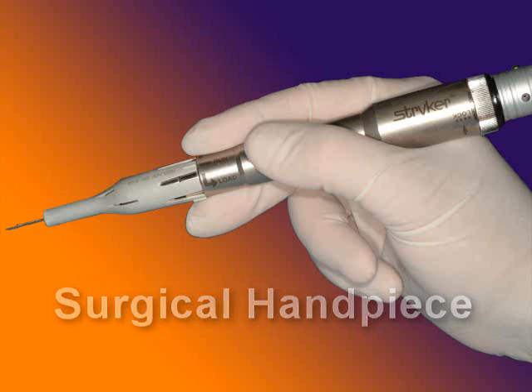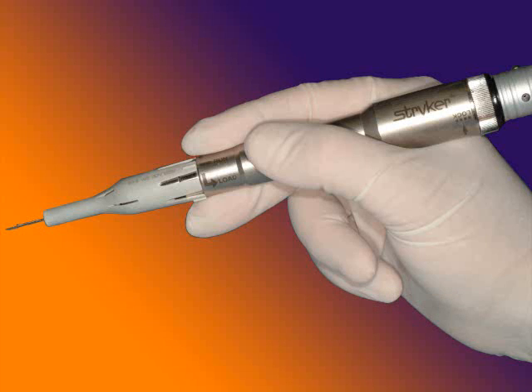The latest revolution in dentistry has been the advancement of dental implants into mainstream practice, especially when we're dealing with the anterior aesthetic zone of the mouth. This has completely changed our concepts about preservation of compromised teeth and, as a result, maintenance and preservation of bone and soft tissue levels. We're now very conscious about the management of bone and gingiva around dental extraction sites so that the natural architecture is maintained around a subsequently placed dental implant and restoration. Because of this, new instruments have been developed to facilitate the atraumatic extraction of both anterior and multi-rooted teeth. These instruments exploit new biomechanical concepts in the practice of exodontia.